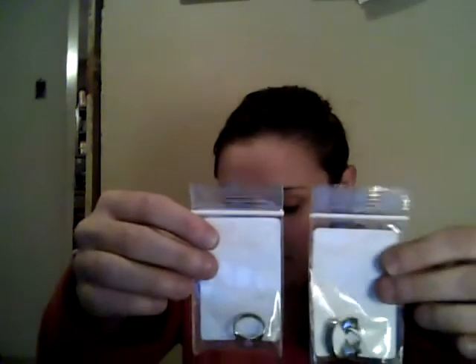Here we have our winged and wingless clamps — our molar clamps — they're going to stabilize our dental dams. We have our little wooden wedges, which are going to be used to provide the contour needed during restoration to teeth.